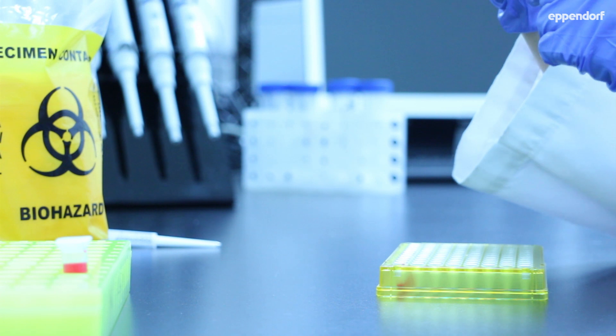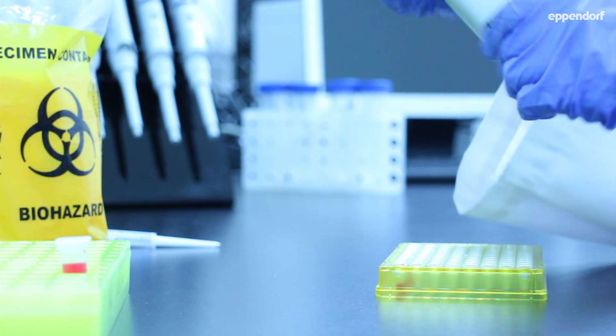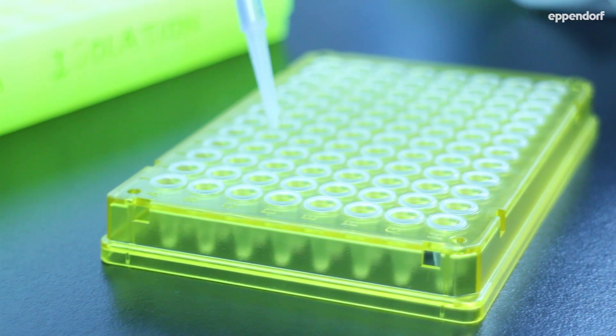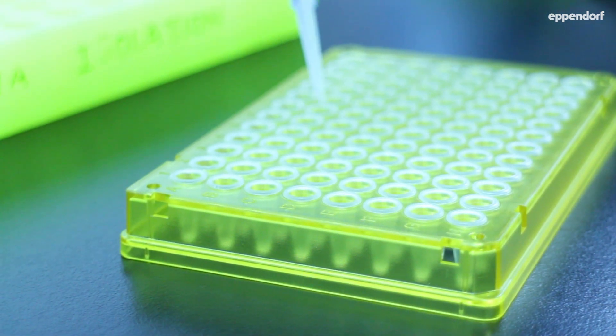We use only premium quality consumables and equipment in our laboratory because we need to ensure our results are accurate. We cannot afford to jeopardize our research by using cheap products.